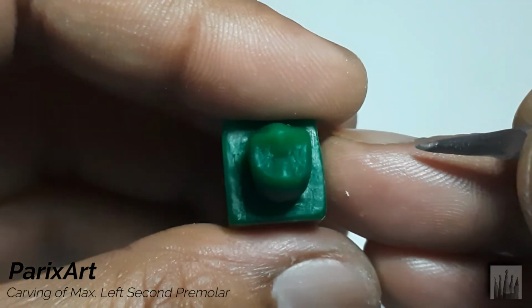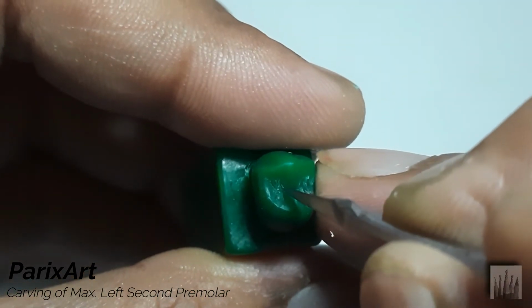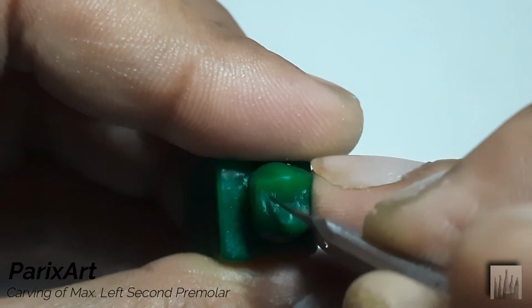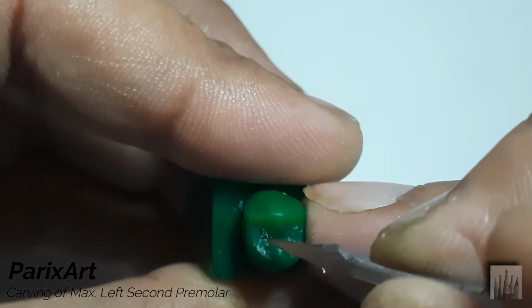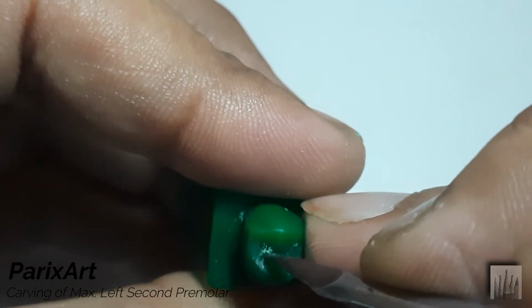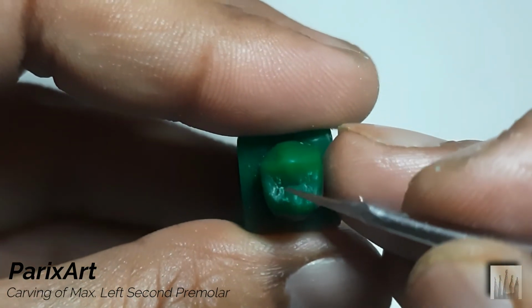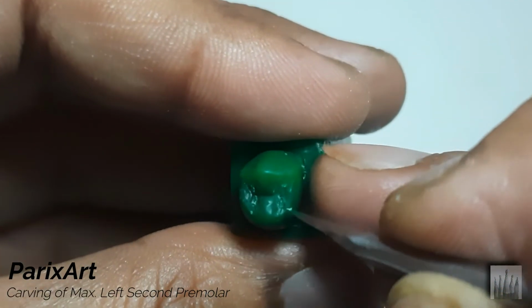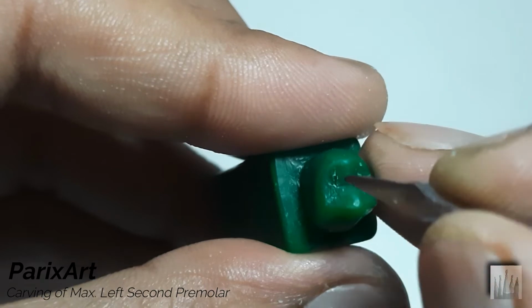See? Using a light pointed carver to refine the shape of the fissures. See? Keep removing the small wax flakes. These stick to the carving and are very stubborn to remove with brush, since our wax is a little soft. Do it very gently.